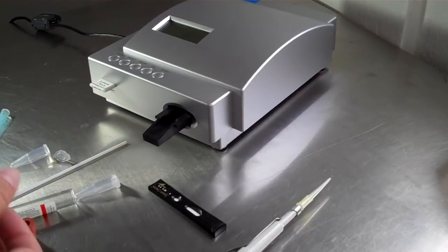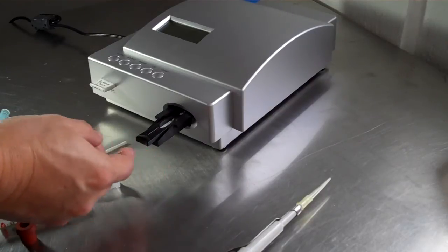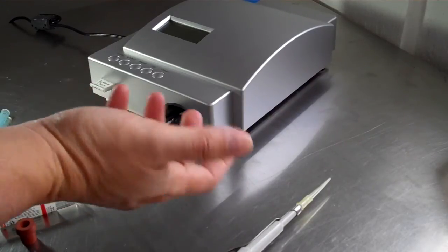The 15 minutes have been up. And all you do is you stick this little slide in there. It's completely automatic. You don't have to do anything else.